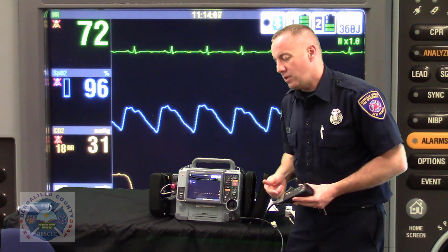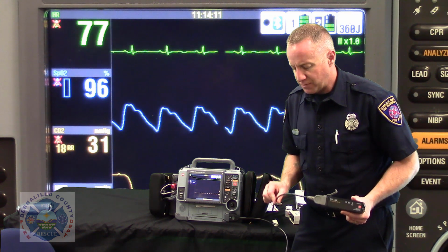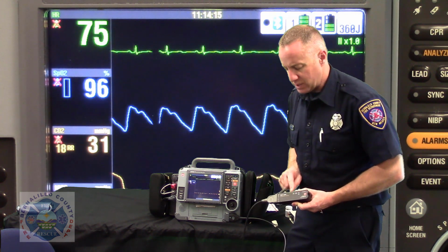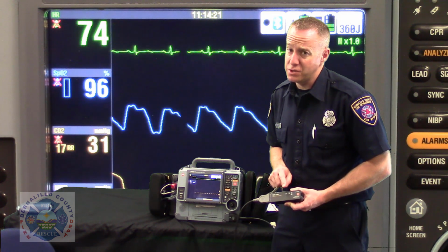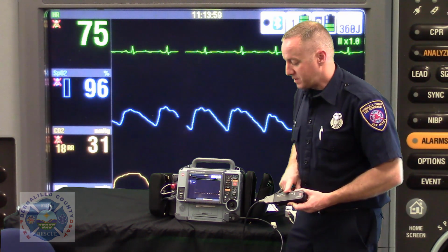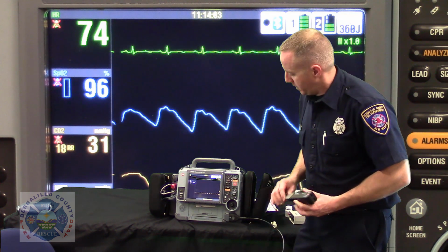But I'm also going to tell you that that is unnecessary. You're really only checking the circuit of the therapy cable, and what the engineers at Physio-Control will tell you is that if you test load this every 48 hours to 360 joules, you'll get about a year's use out of the test load. It'll need to be replaced. Whereas if you test this at 10 joules, you'll get probably a lifetime of use out of it.